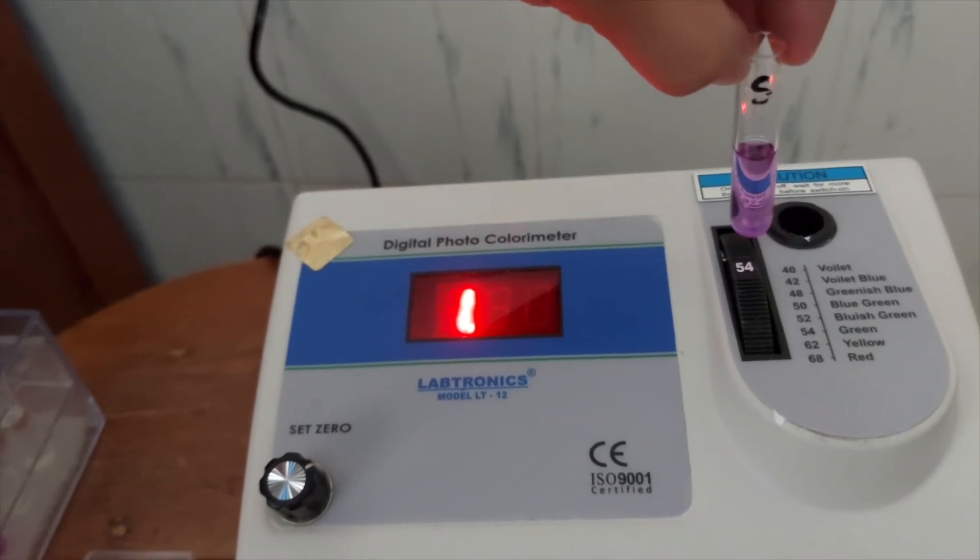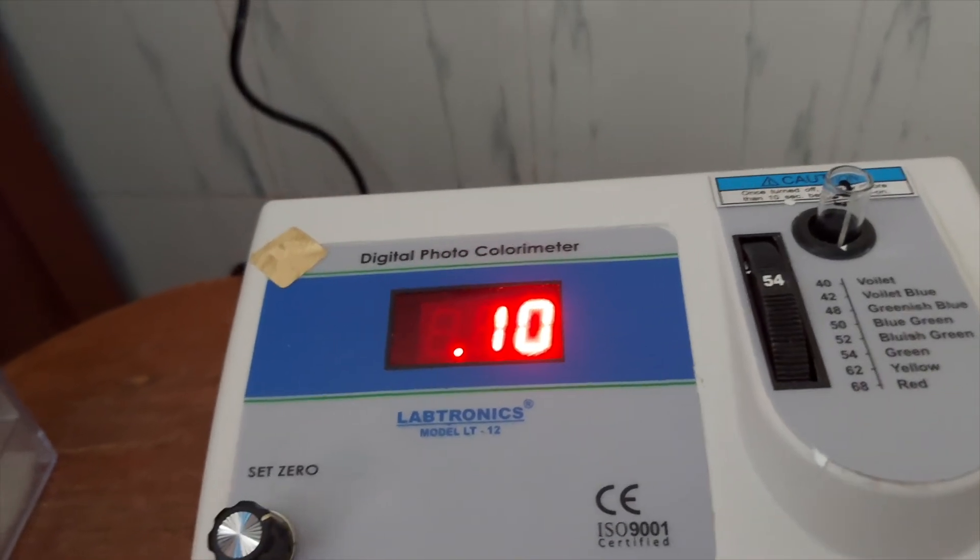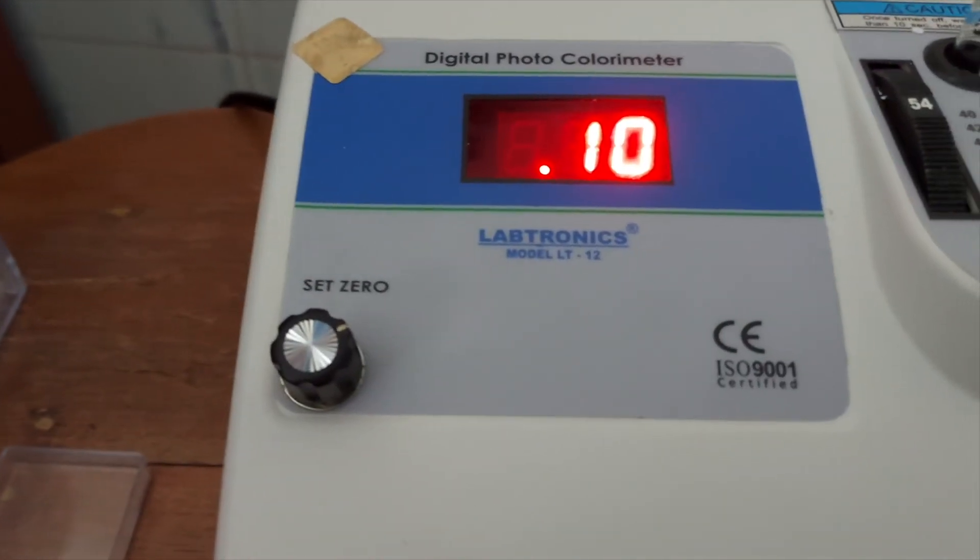First, we are going to take the readings for the sample. Here, the absorbance of the sample is 0.10.